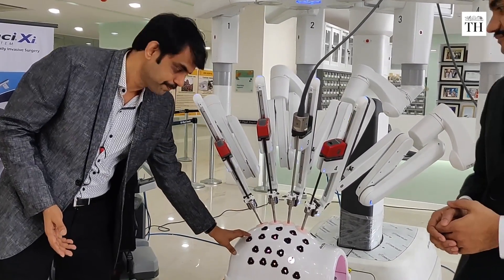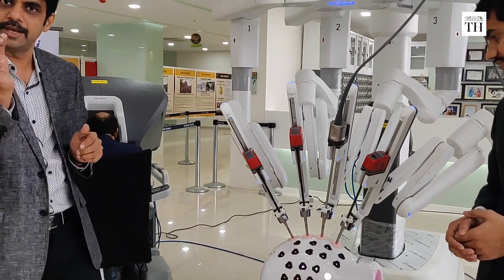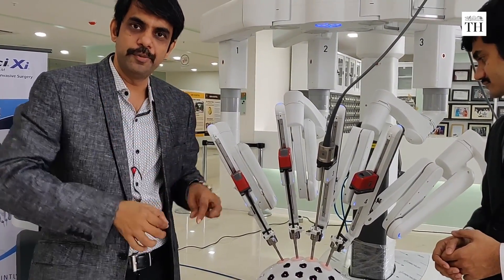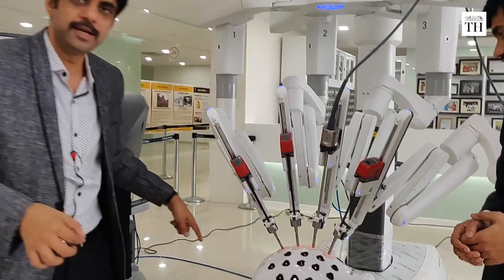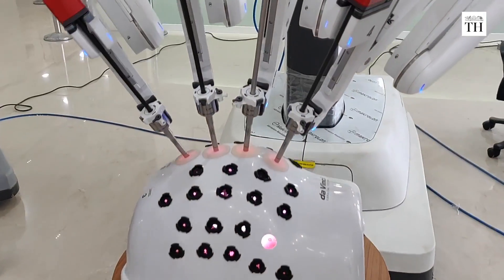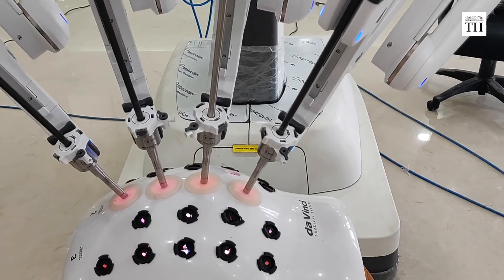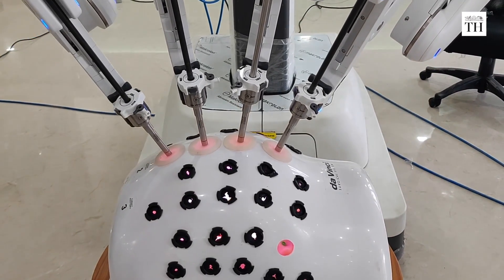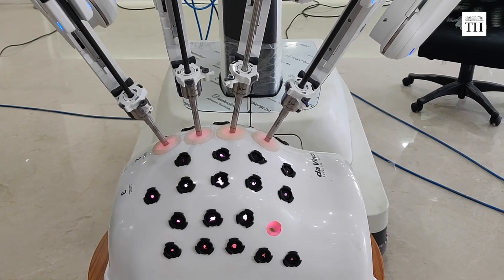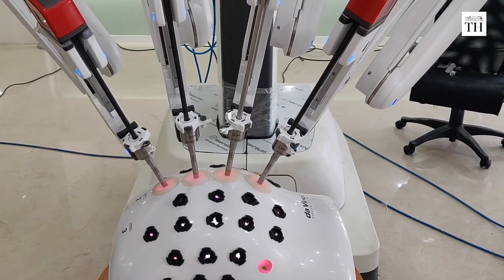Imagine this is the patient's body — three or four holes are made, only eight millimeter holes, placed at different parts of the human body. You can see Dr. Rajshagar move the instrument, and once he moves his hand, it is replicated here in the form of movement of the arms.